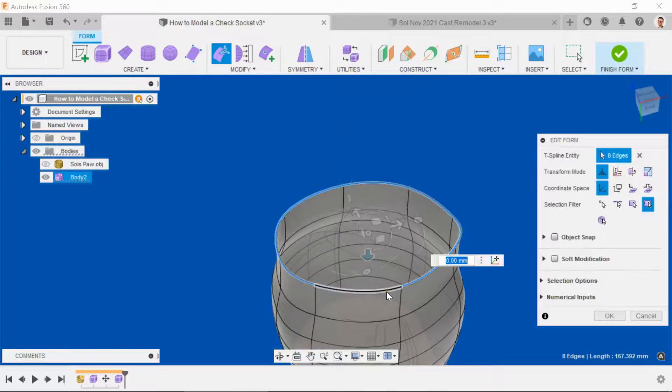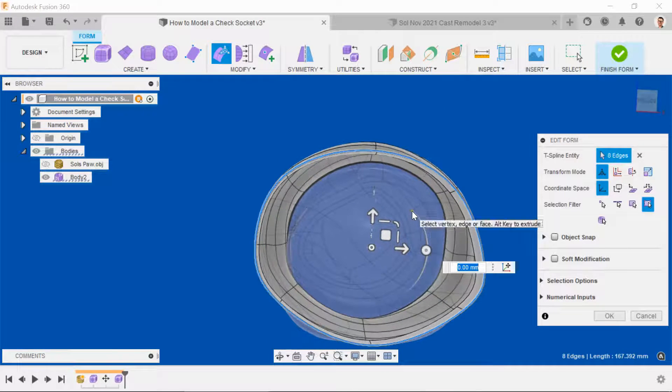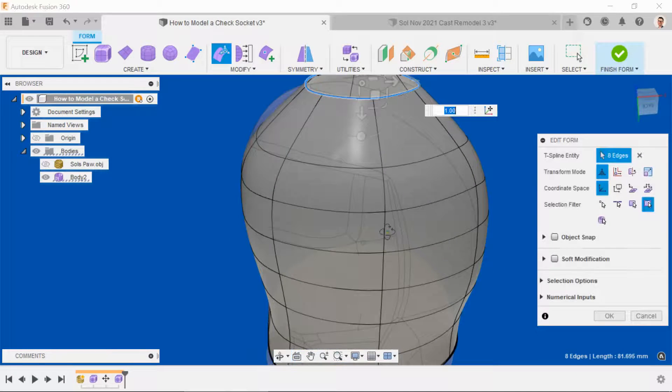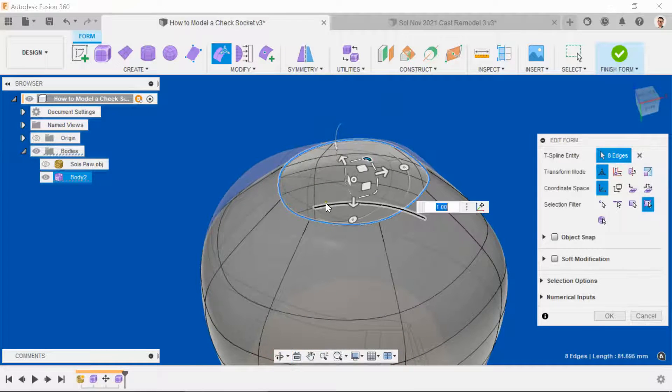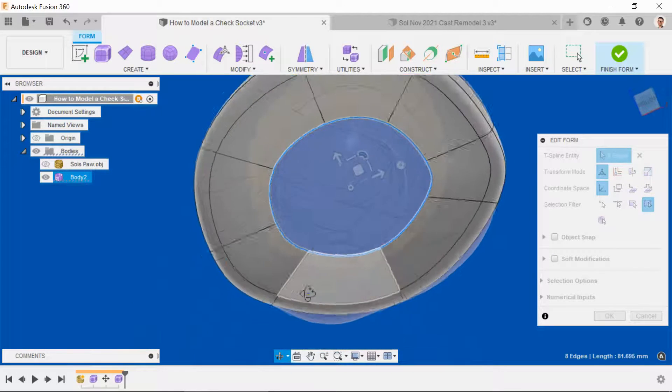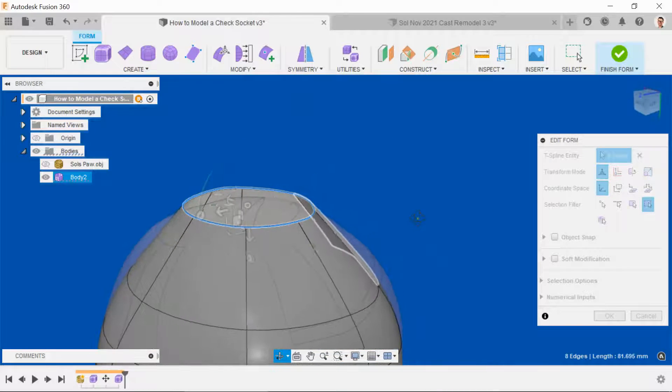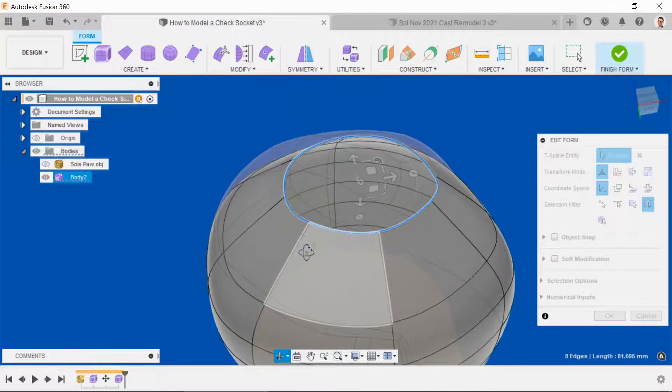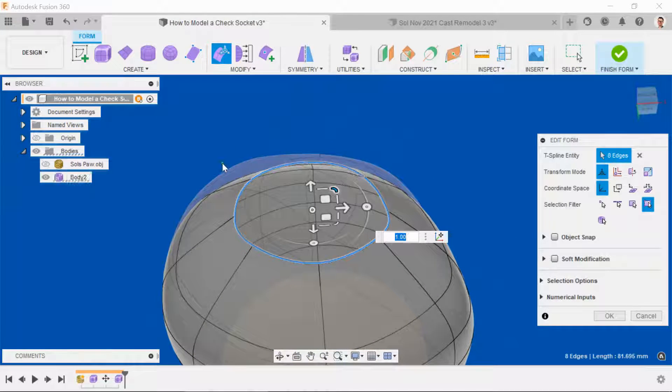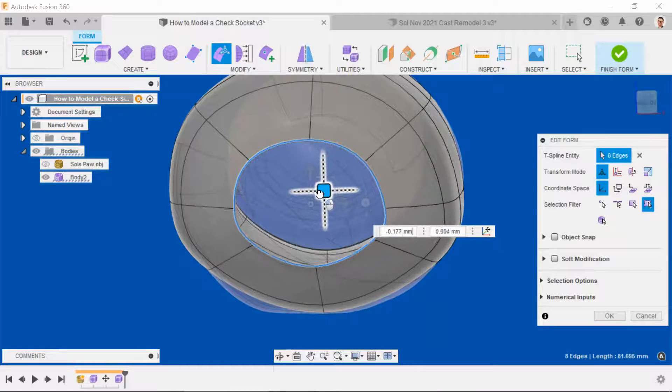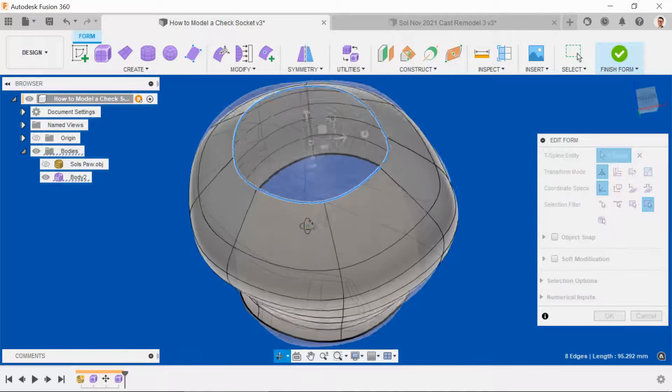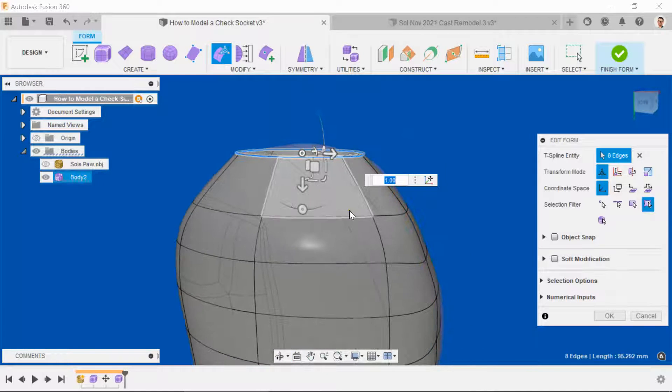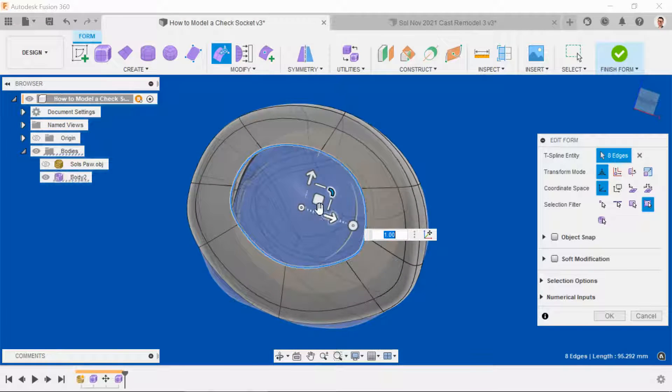This time, however, we're going to look from the base up and we're going to use the corner scale bar for the first time. What this will do is scale in every direction and pull that in. We can see the tip is just sticking through. And I can see that because it wants to center when it closes using the corner scale bar, it wants to center away from the natural shape of the stump. So you can see there this ghosting here at the side there, that's actually flesh. So we're going to pull this back. Perhaps open it up a tad. And that's good.